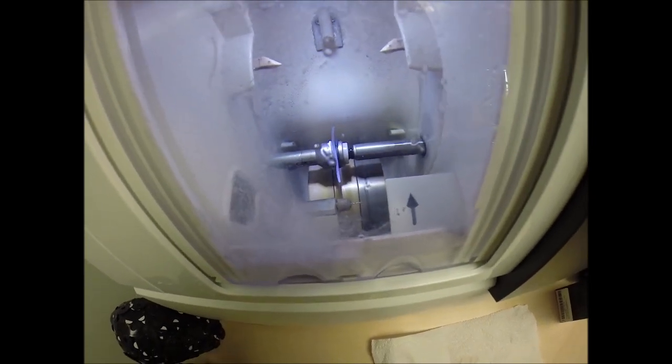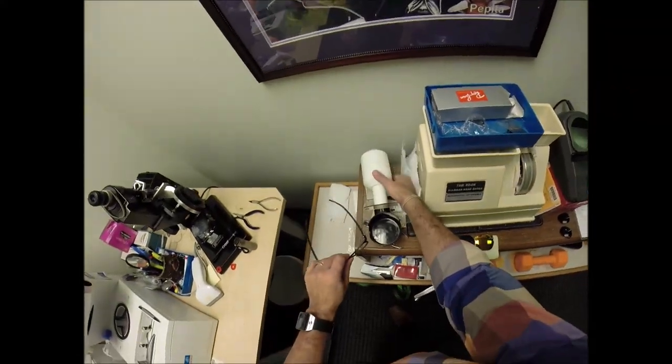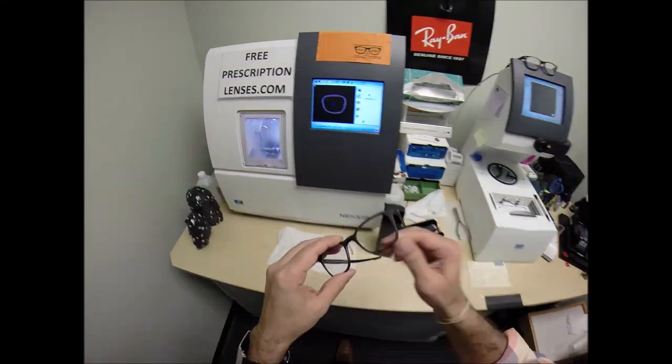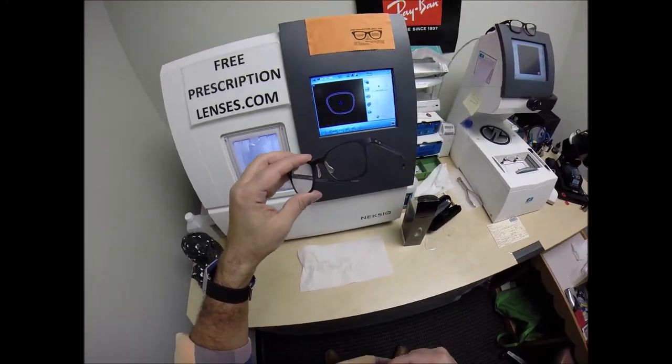That old carpenter's saying, you can always cut more off of a piece of wood. You can never add it back on. So I started a little bit large and worked my way down. But I'm going to take it off in increments until it's the final size. I could use heat. Turn this on. Expensive heater. And that makes plastic more pliable. But I like to do what's known as the cold mount. You married guys know what I'm talking about.